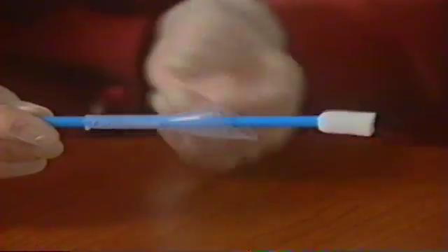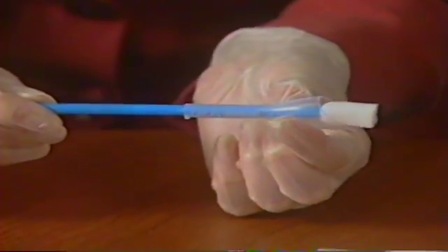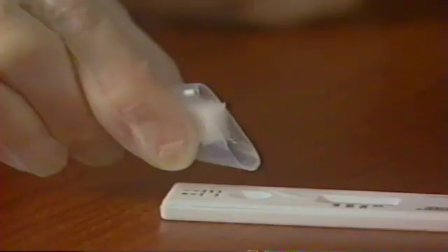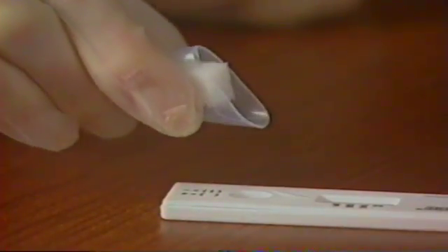Continue holding the collector slightly upright with one hand and use the opposite hand to gently slide the hood forward until resistance is met. The hood should now completely cover the foam. Squeeze the hood together using your index finger and thumb until the foam just begins to release the oral fluid, and slide your fingers towards the front of the hood until drops begin to form at the tip.